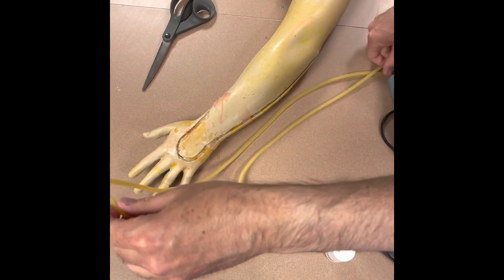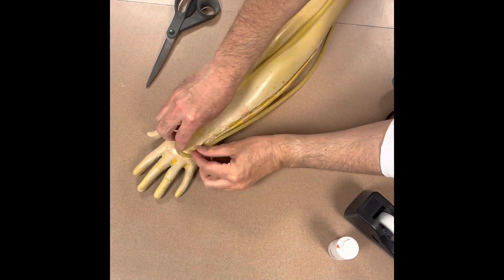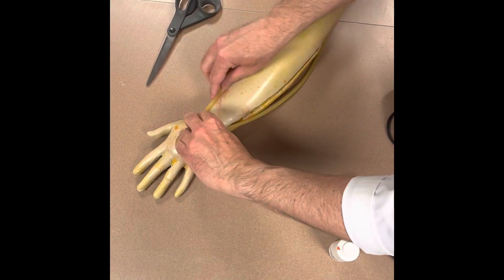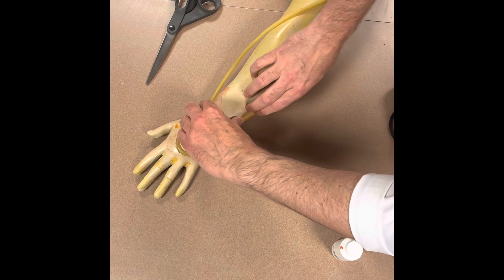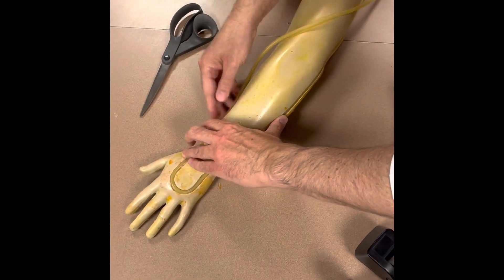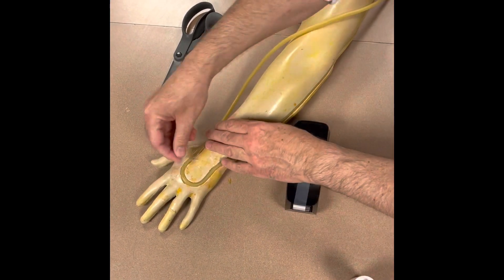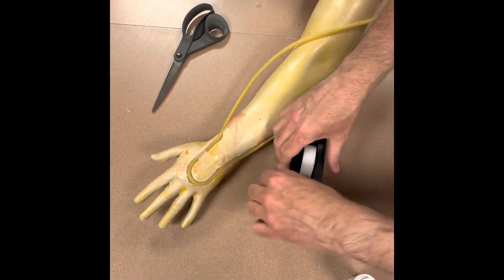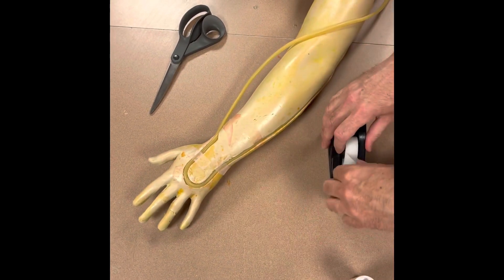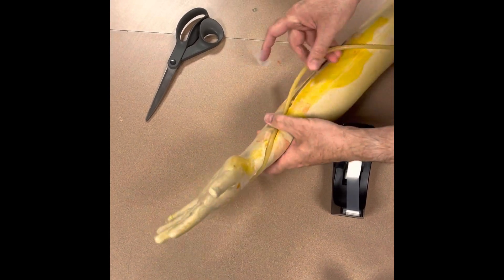I should be wearing gloves when doing this because super glue is not fun to get stuck to — I highly recommend wearing gloves. Then just follow the trail here for the veins to sit inside. While doing that, use scotch tape just to secure the veins down, because sometimes they can roll up as you're pulling the skin on.